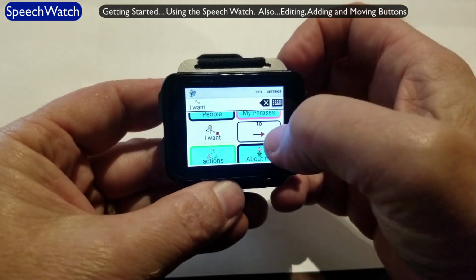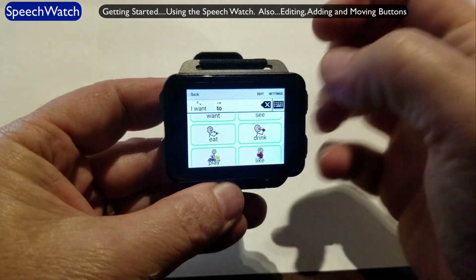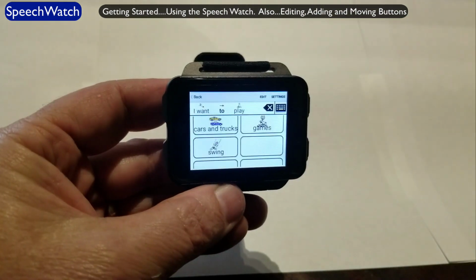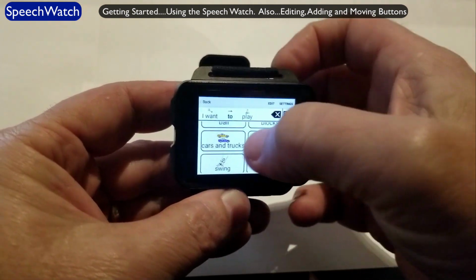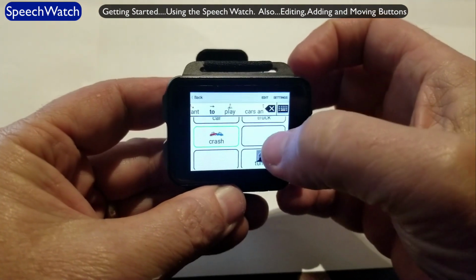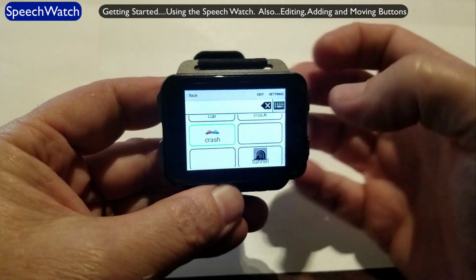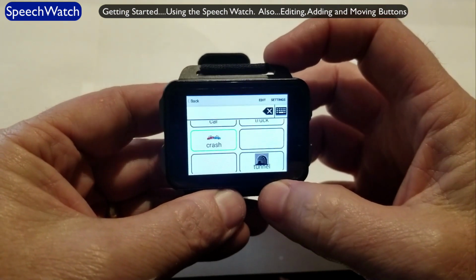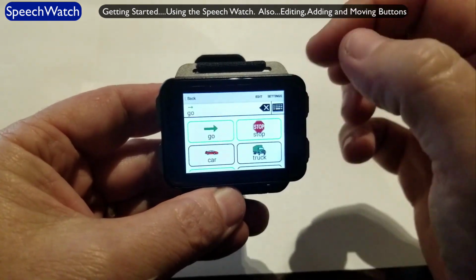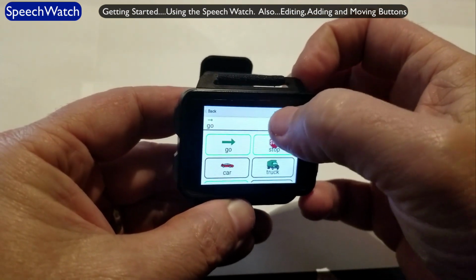I want to. And as I'm selecting things, they're popping up here into my message bar. Play. Cars and trucks. So each of those, as I selected it, came up in here in my message bar. I want to play cars and trucks. And now if I touch the message bar, it speaks out the entire sentence. Or I could simply just Go. Type words or select buttons from the screen and it will speak those out as well.